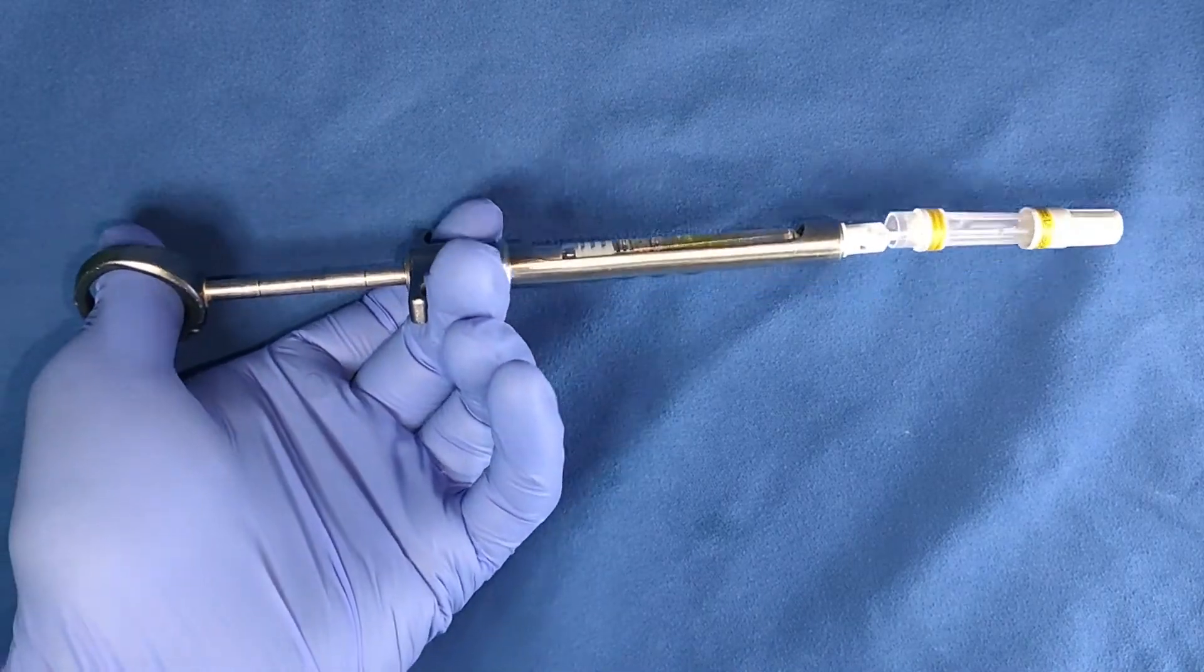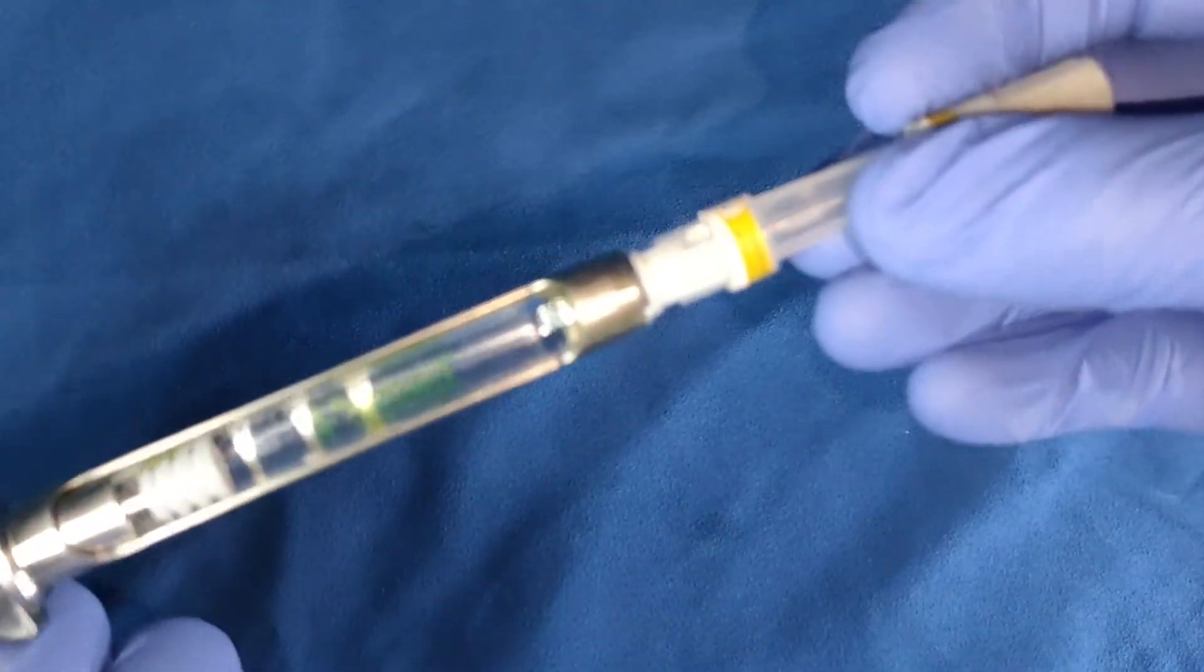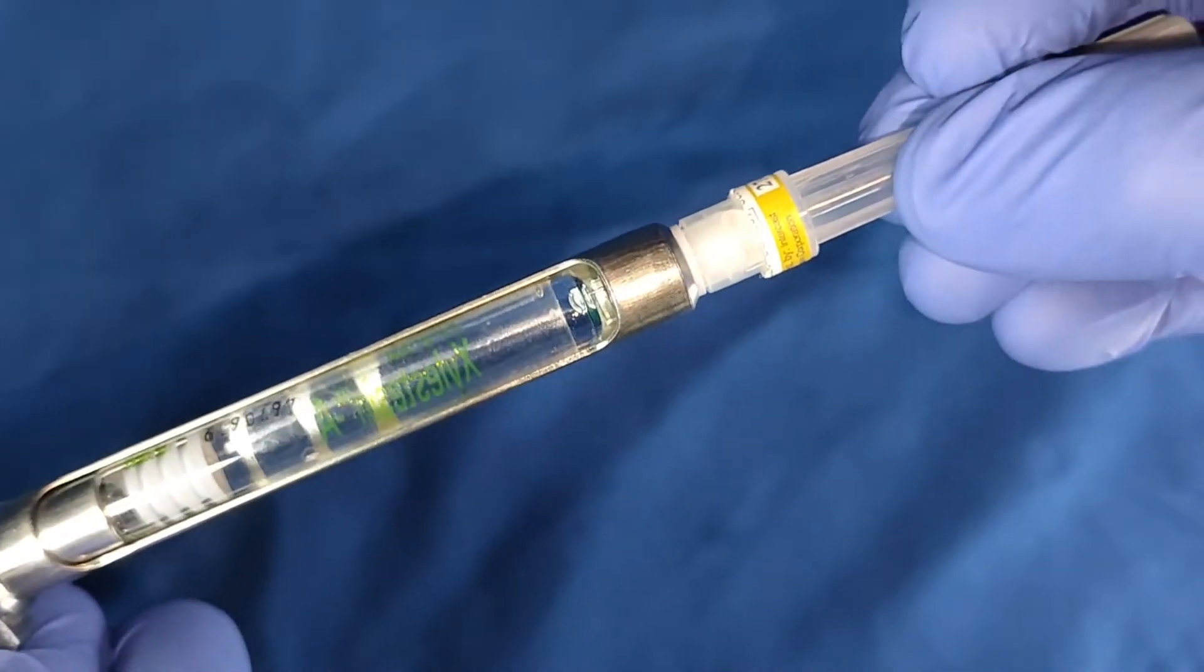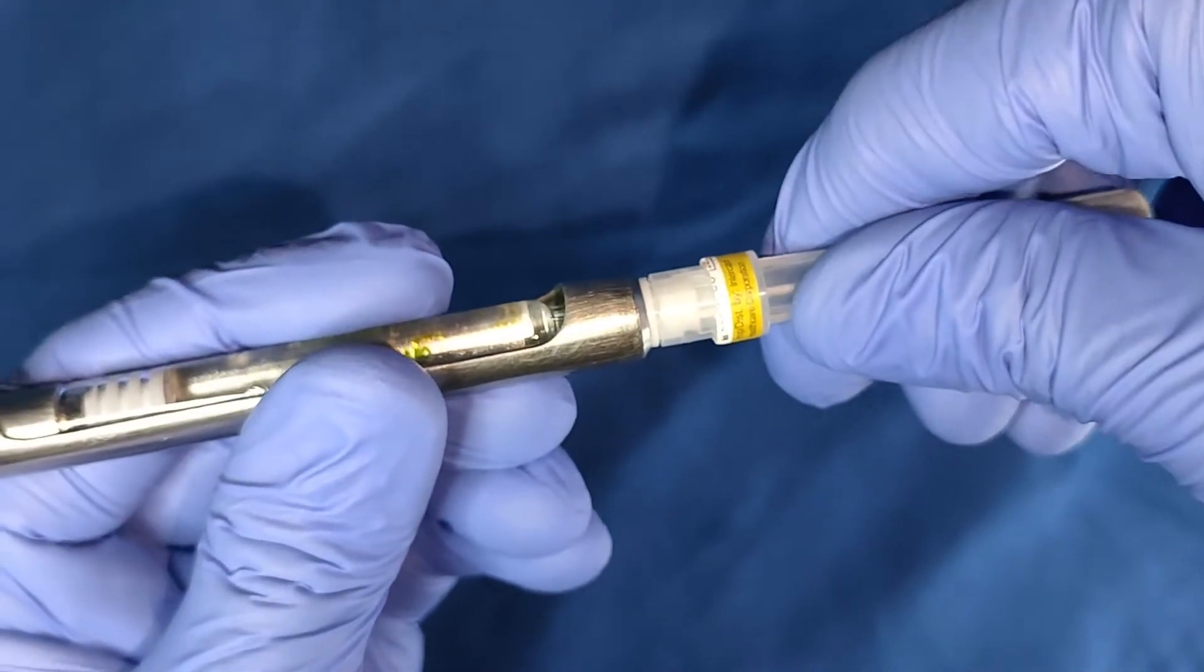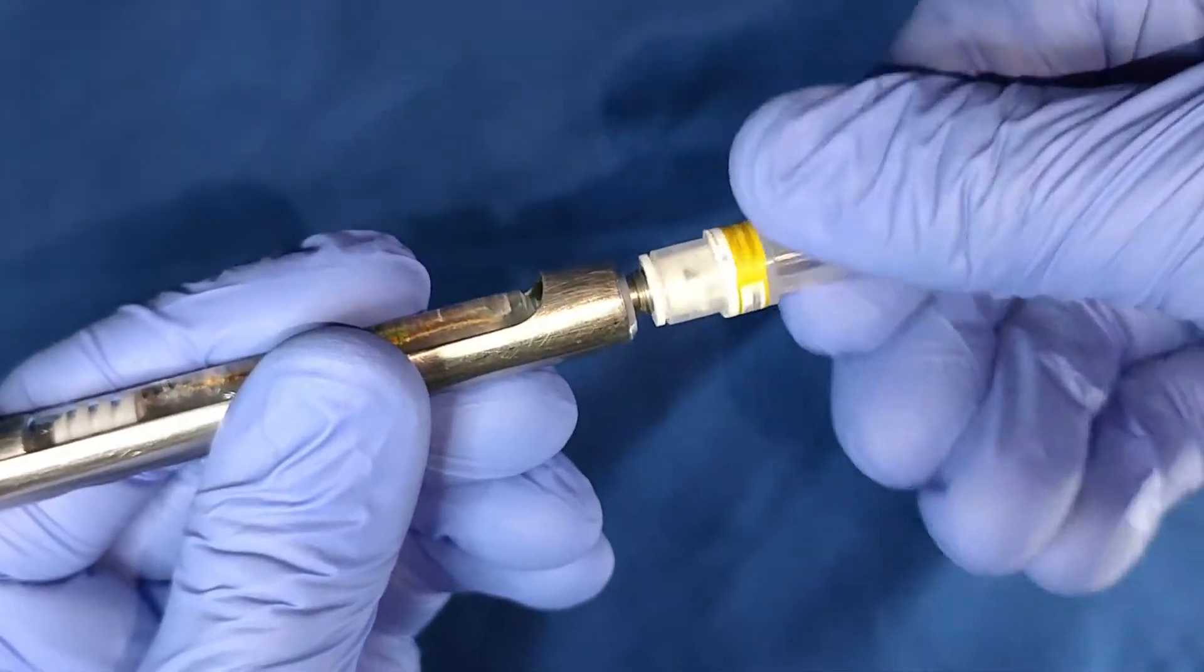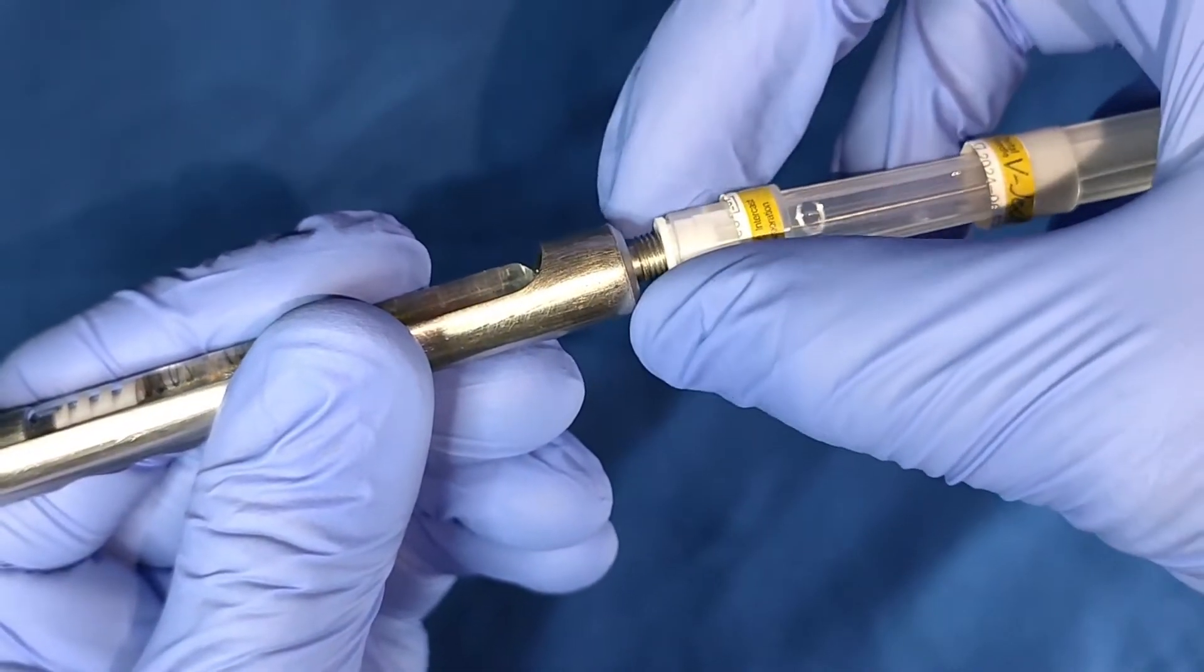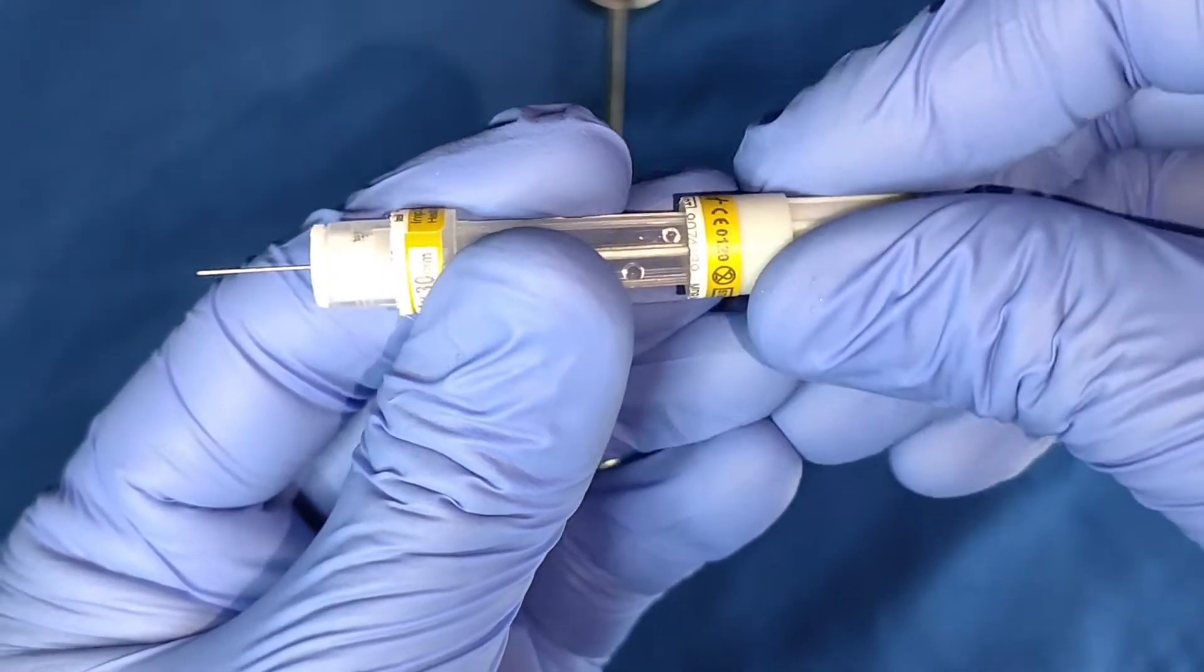Never use your other hand. Press it to close it properly. Twist, pull using this cap, close.